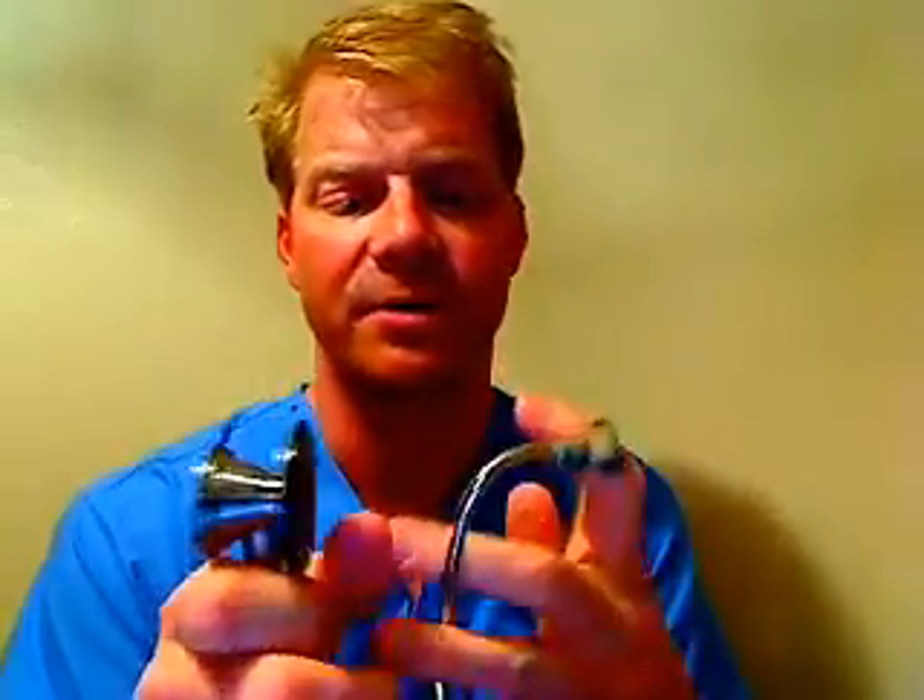I haven't seen it anywhere else, but what you do — as we know from previous videos, this is just a hole in here, there's no diaphragm — you cover one ear tube with your finger, and then after hopefully washing this tip, you blow on it very gently, back and forth. If you have a good diaphragm that doesn't need replacing, you won't hear anything, and you'll see it move back and forth. If you have a bad one like mine, you might not see it move at all — or it moves, but you'll hear air escaping from it. I'll do the small diaphragm first: cover one ear tube, blow gently in the other one. Don't blow hard — you don't want to damage your stethoscope. Watch for that diaphragm to move up and down. See how it's moving up and down? That's how it should be, but you shouldn't have the sound that goes with it.